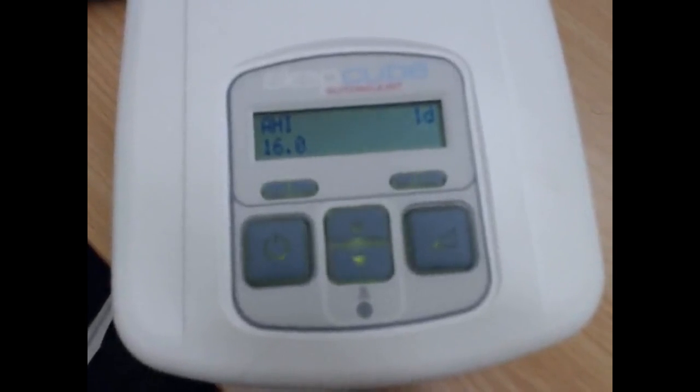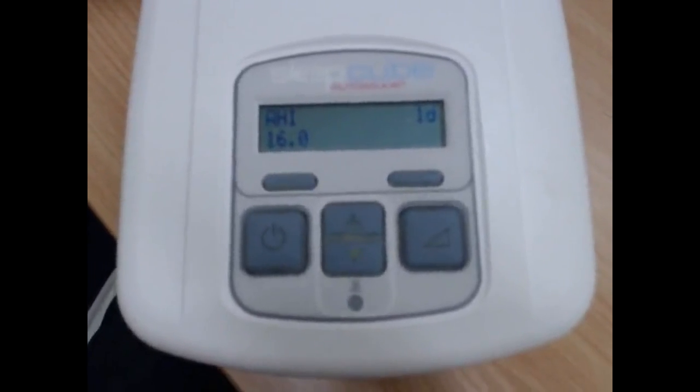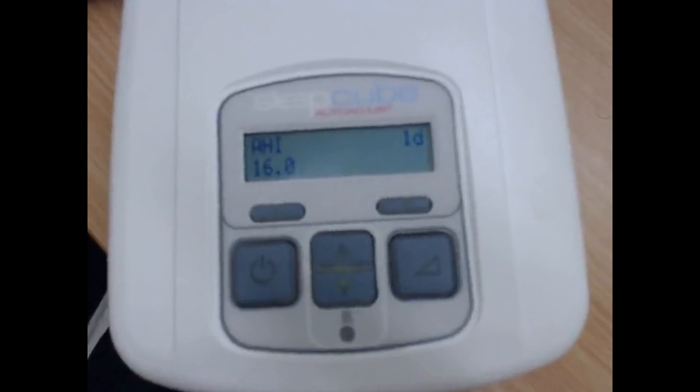Another way you can work out your CPAP pressure, fixed pressure, is if you run this machine in automatic mode for a week, and then we do a download of that data using the smart code. We can actually look at some values. One's called the P95 and one's called the P90, and those values tell us, basically, how do I explain it? They tell us that the machine is below that value 90% of the night.